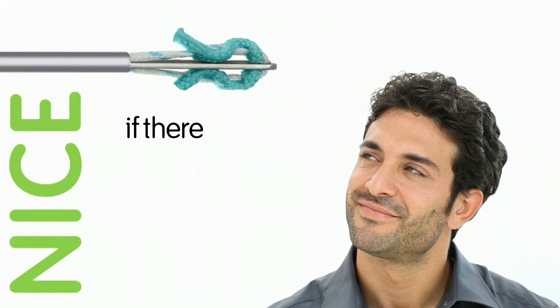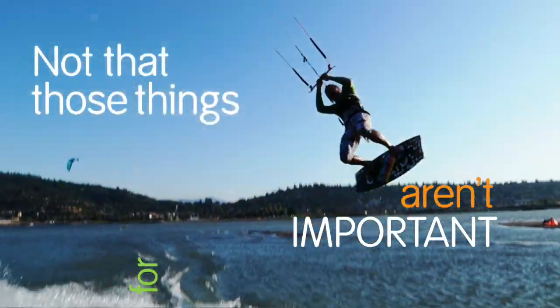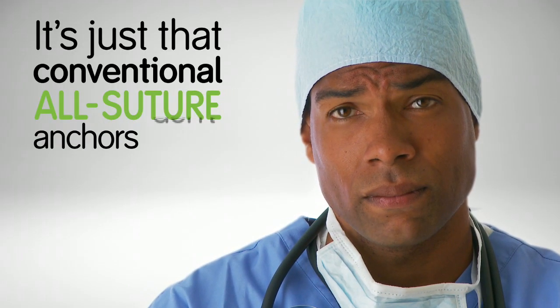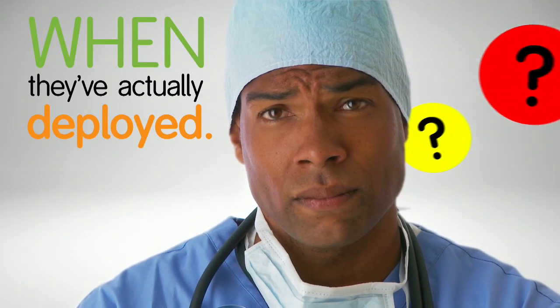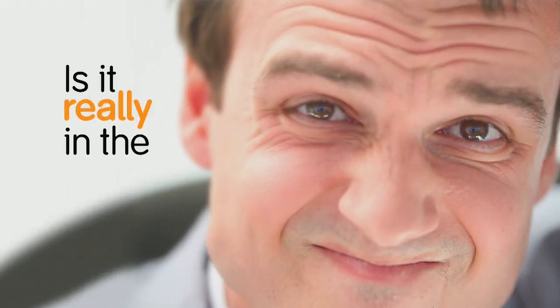But wouldn't it be nice if there was a soft anchor that offered you more than size and strength? Not that those things aren't important for performance. They are. It's just that conventional all suture anchors don't tell you when they've actually deployed. So you're left hanging. Did it really deploy? Is it really in the bone?